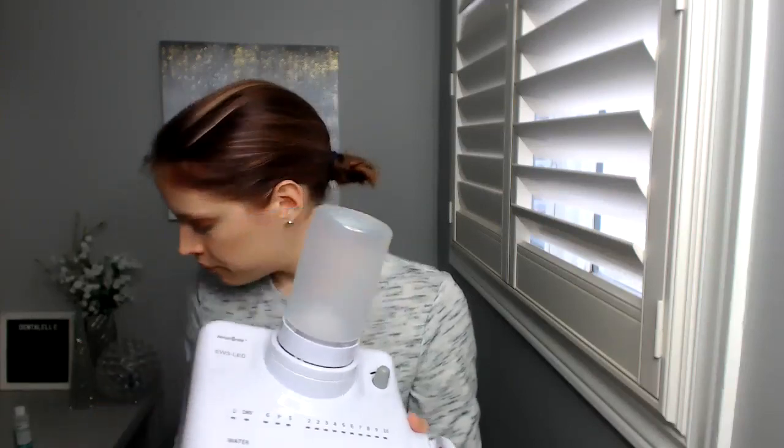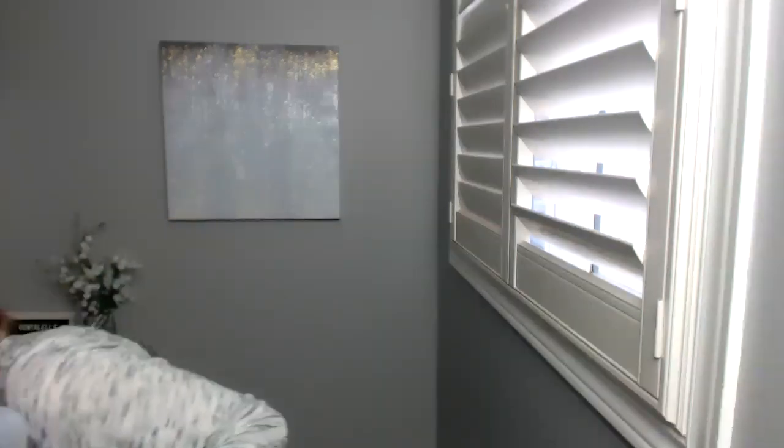The power goes from one to ten. The water does have a knob, but I'm fine with that because I usually keep it at the same setting anyway. You can turn the water on or off. My actual handpiece is in the sterilizer right now, so I'll show you that in another video, but it just attaches easily. It looks nice, I love it.